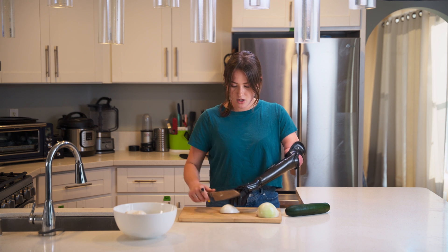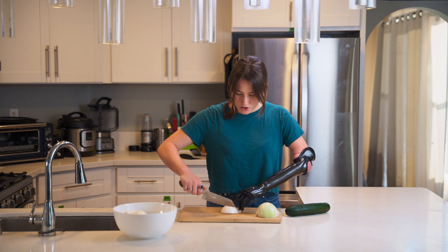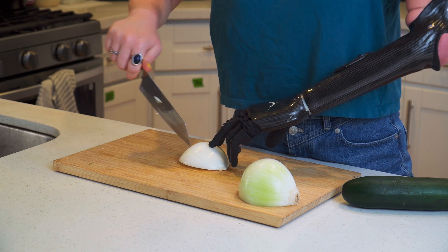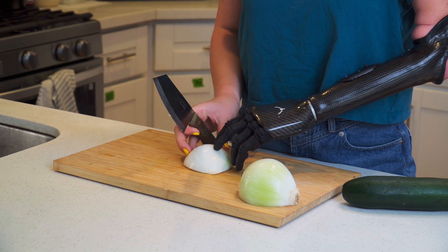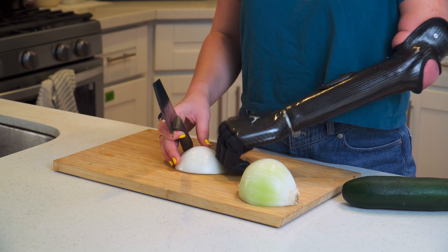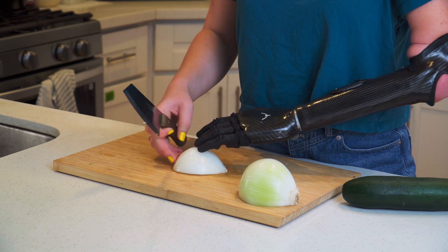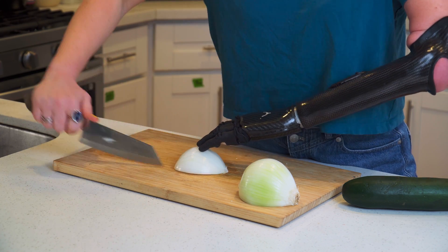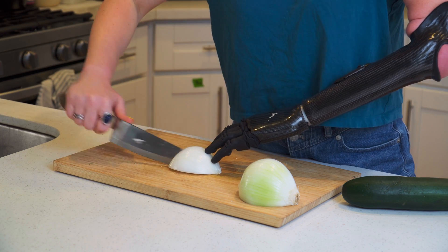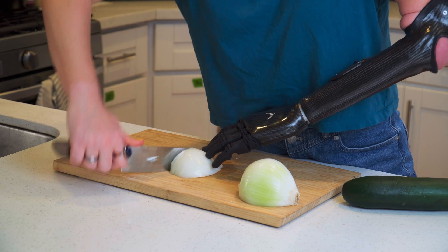If I was just making slices I could just go down, but for the purpose of showing you I'm going to do small slices — and as you can see I'm not going all the way towards the end of the onion. With my ability hand I can also press down, and I'm just pressing down on the onion while I make those slices. Move it as you go.